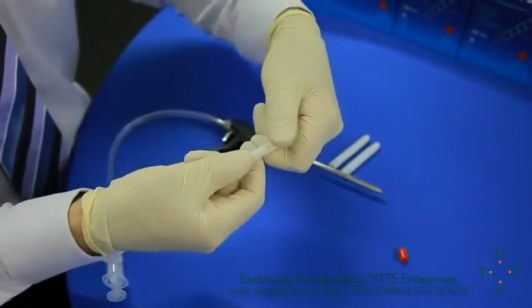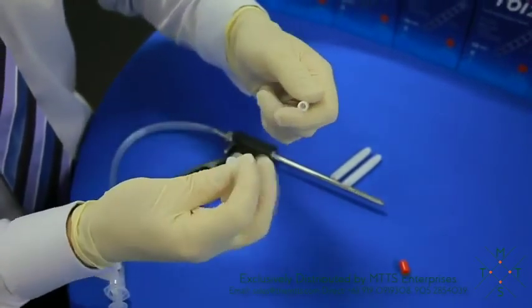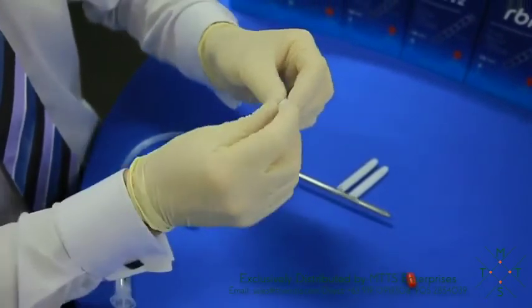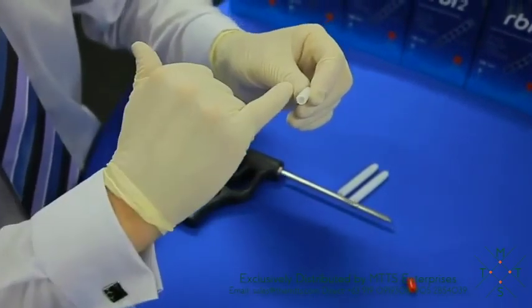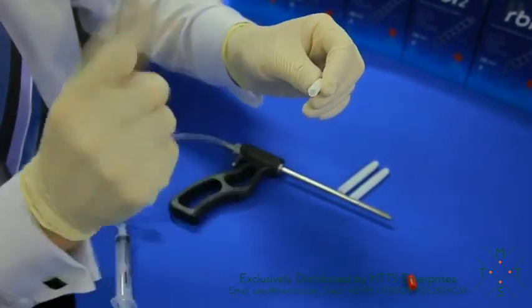Simply place your fingers under each side and your thumbs on top and push downwards on either end. You'll notice that the seal is now out of the way, and what we're left with is the blade totally wedged into the plastic to stop any accidental sharp injuries, and also the specimen is sitting inside.